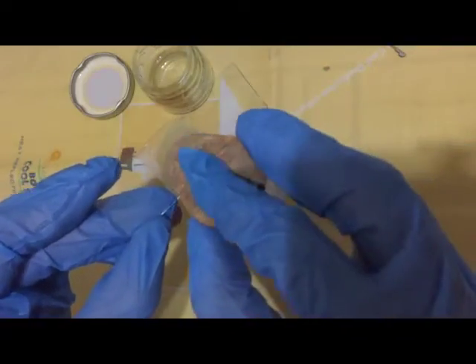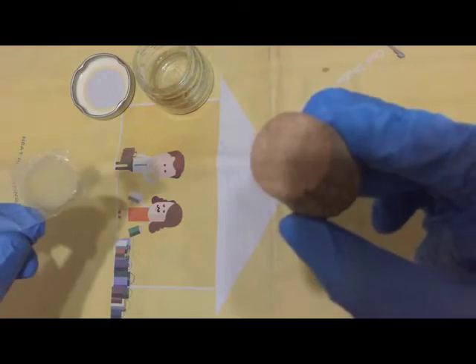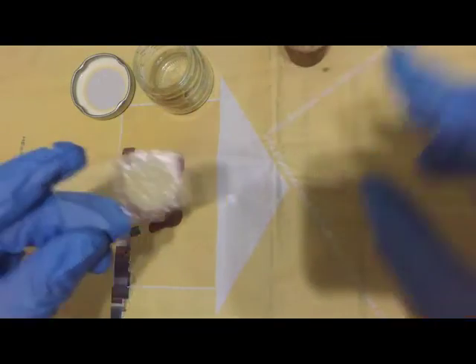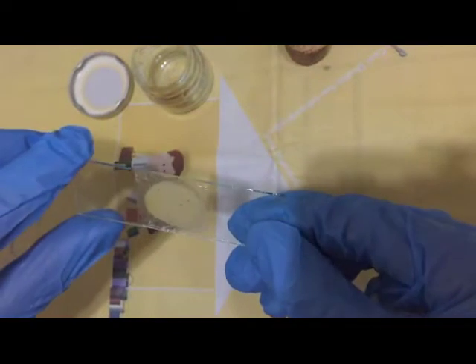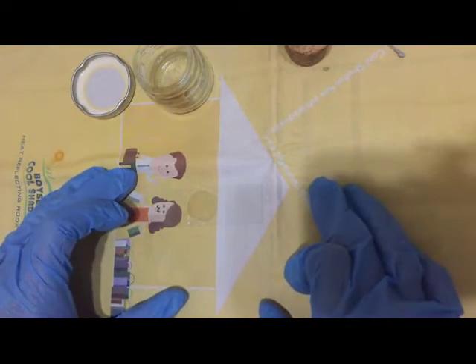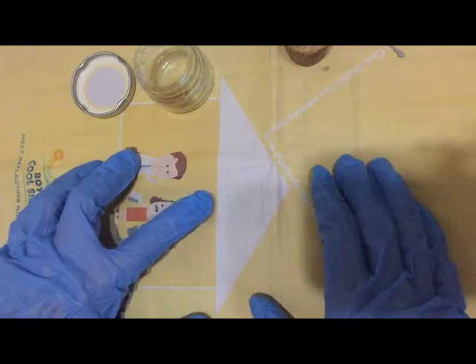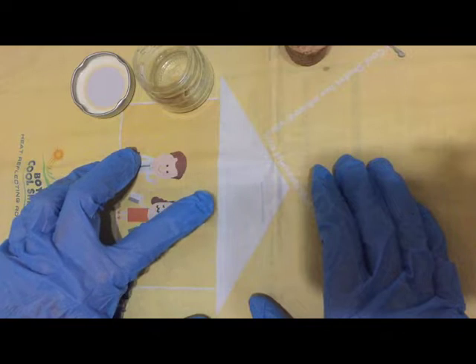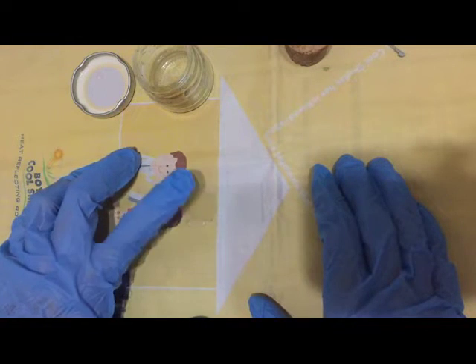You flatten the sample out until light is able to pass through. If you don't have corks or rubber stoppers, what you can do is you can invert the glass slide, place it over the top of your workstation, hopefully covered, then you gently press on the back until the stool becomes evenly distributed. But you have to make sure that you do this gently so as not to break the glass slide.